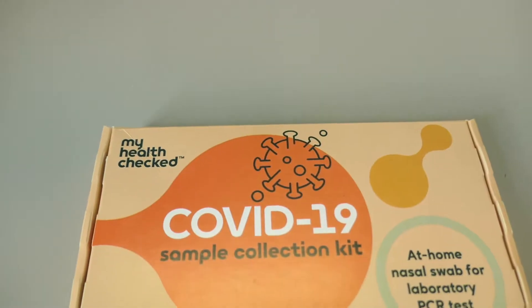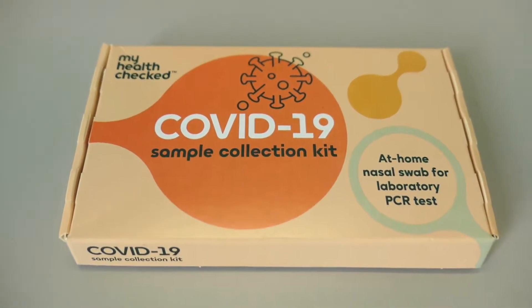Hi everyone, today we are going to be explaining to you how to use your COVID test kit at home.